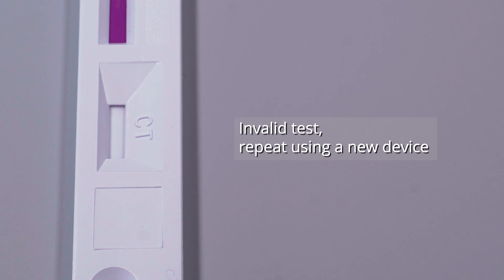If no blue line appears, the test must be considered invalid. Sample testing must be repeated using a new IngeSim ASF-Chrom antigen detection device.